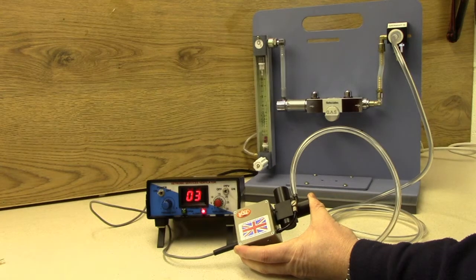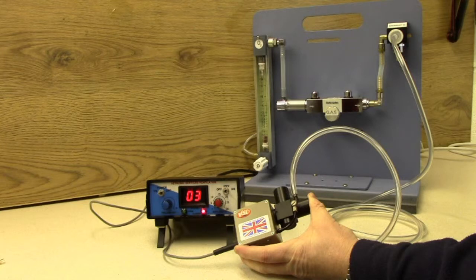If the action of the solenoid is not smooth and repeatable, or if there is any apparent sticking of the valve on the solenoid during this function test, then it should be returned to your distributor or supplier for servicing.